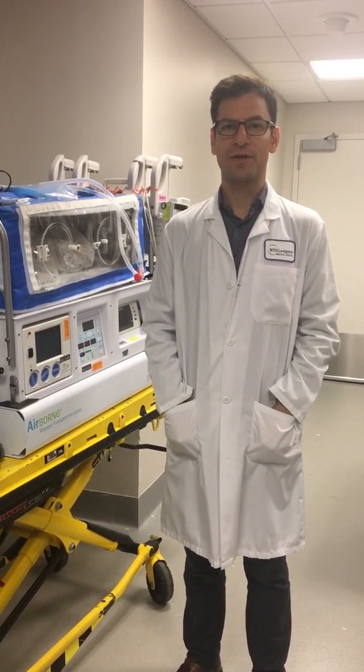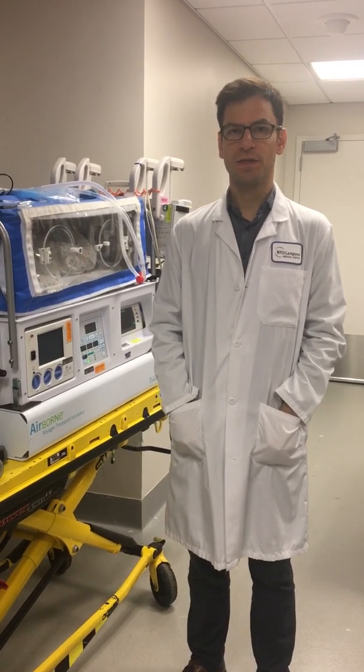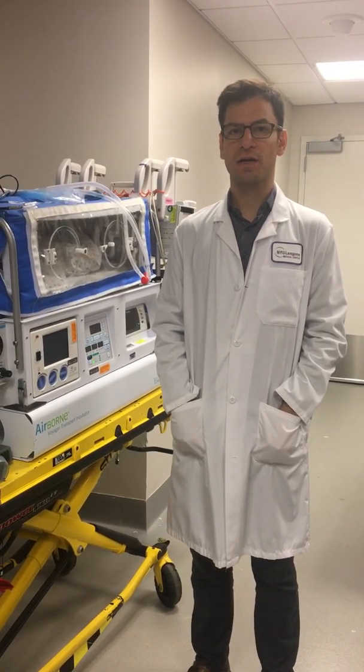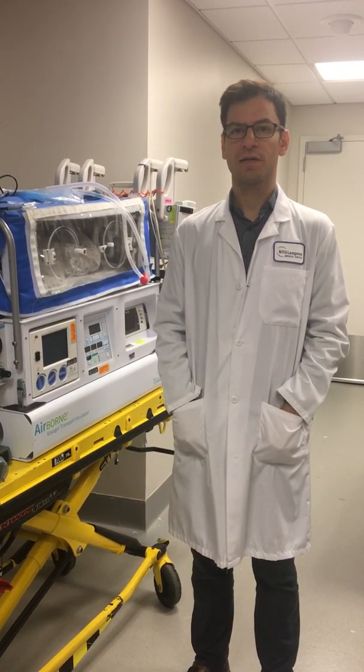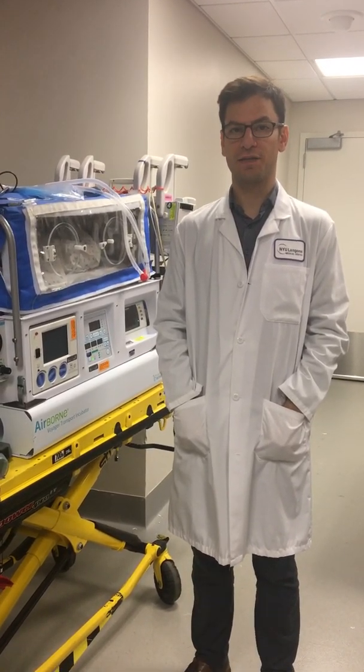Hello, welcome to another NYU respiratory department training video for neonatal transport. Today we're going to talk about conventional ventilation with nitric oxide use.